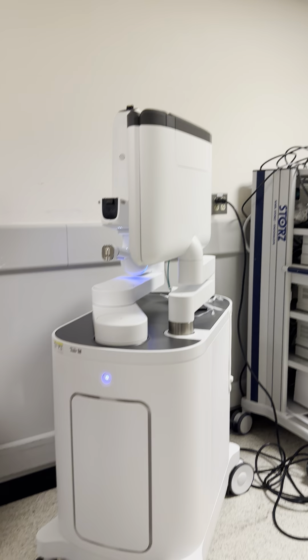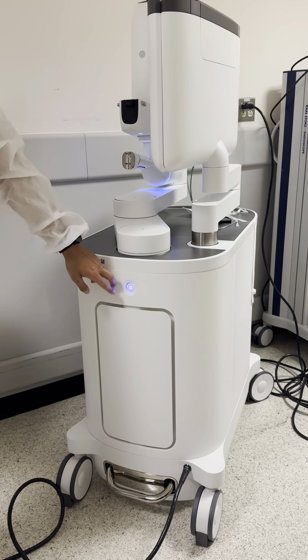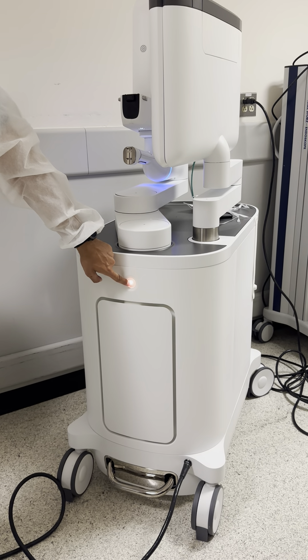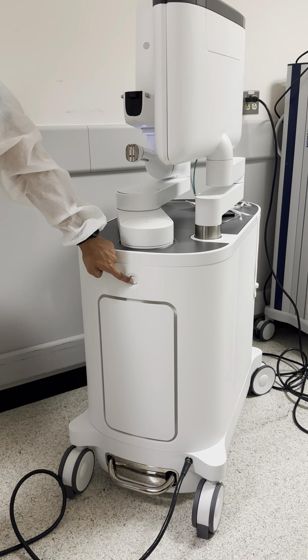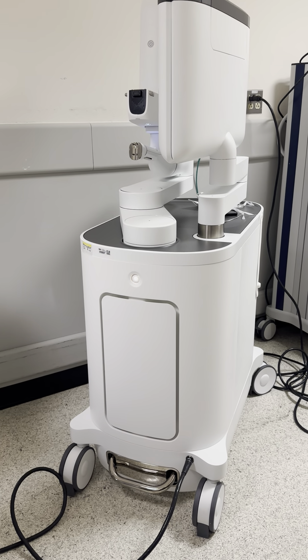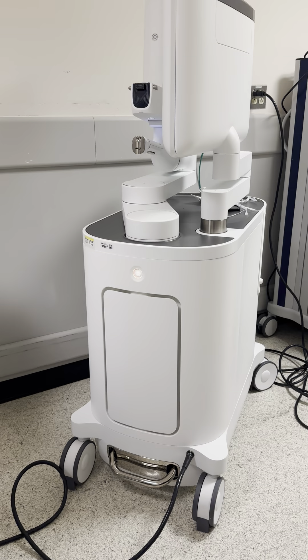The final step is to hold this for five sounds until it turns off — the fifth sound is high-pitched. Now it'll blink yellow, which means that it's powering down. And once it turns white, we know that it is turned off and plugged in.